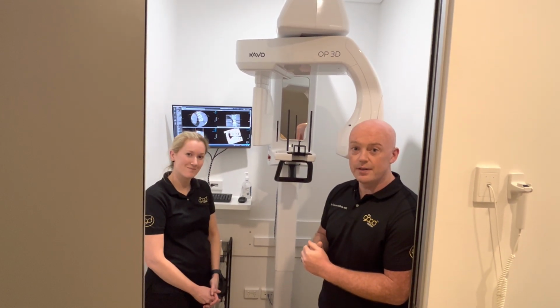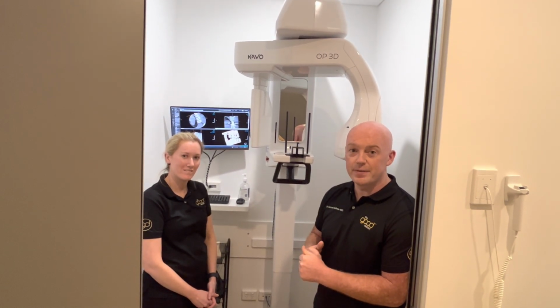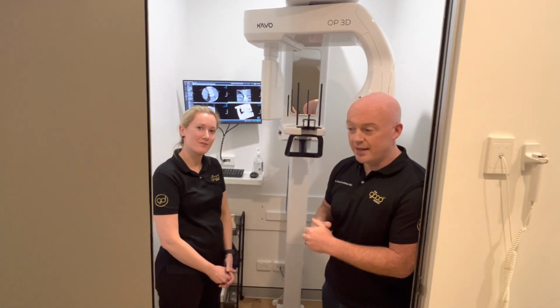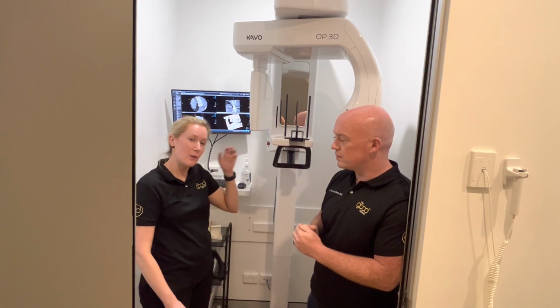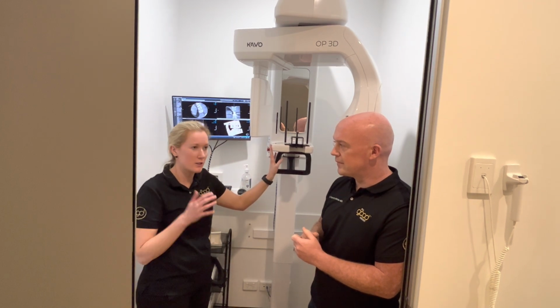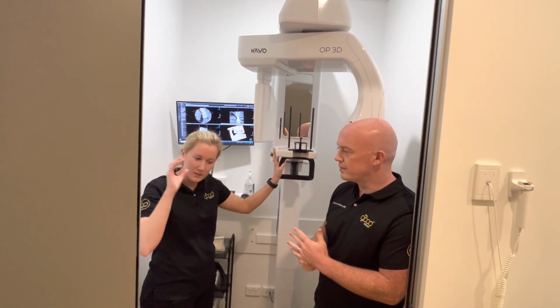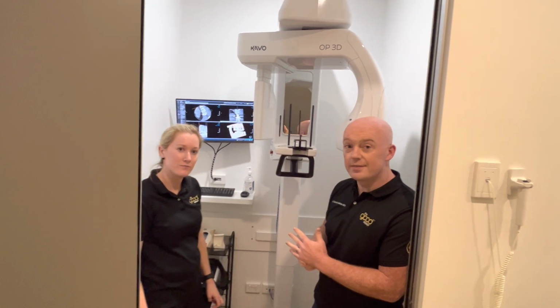Wonderful. Thanks so much for giving me some of your time, guys, and I'm glad that everything's going well with this system, and it's a beautiful practice you've got here. And do you mind if I interrupt as well? No, never. Amy's actually setting up her own practice next month. Amy has used this machine and other. I've used this one and the other one that Australian Imaging sells, and definitely I will be going for the OP3D, or I think it's just been rebranded. This is the one I would go for, for the ease of use. You just select the tooth, and 98% of the time the scout is exactly where you want it, and that's what I like. So you find the software quite easy to use?